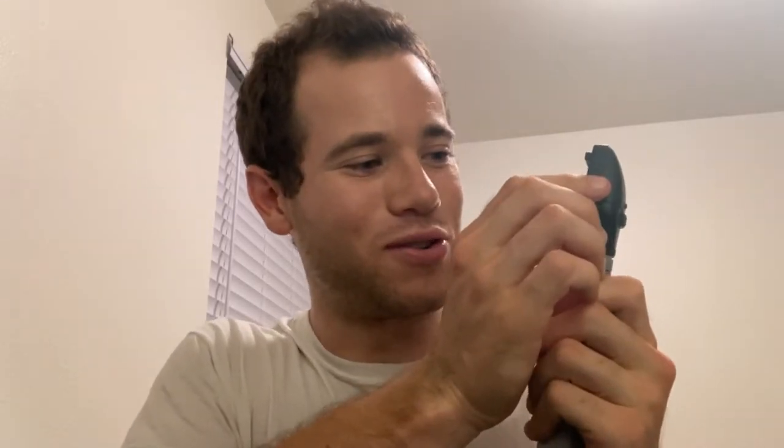On these models there's a little bar on the outside, and as you move it you can see it changes the numbers — this is the diopter setting. If you need glasses, for example my prescription is minus 2.75, you'll need to adjust this. If you have 20/20 vision and need no corrective lenses, zero diopters is set for you. But if you want to use this without wearing your glasses, the healthcare professional puts the eyepiece up to their eye.